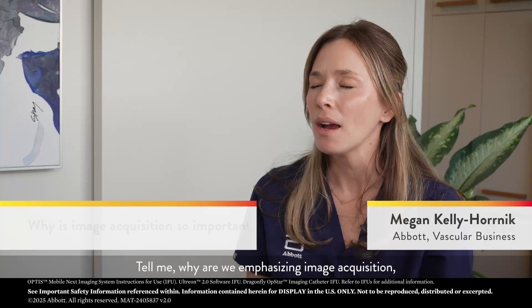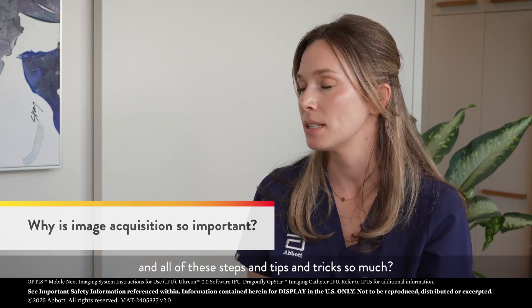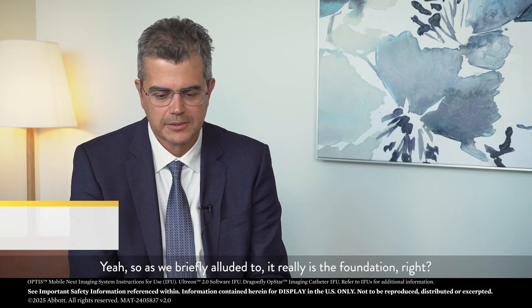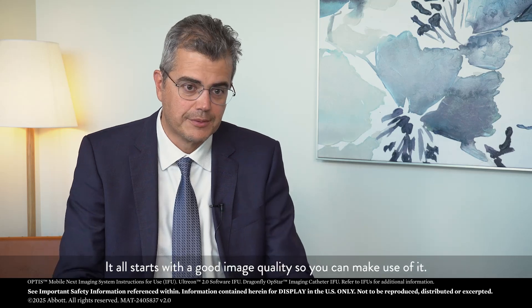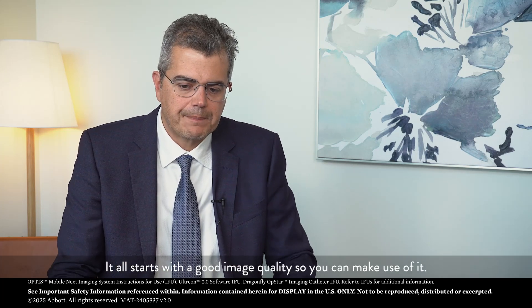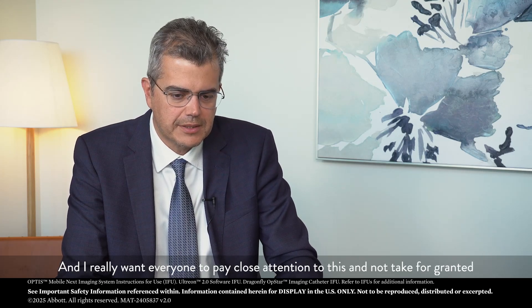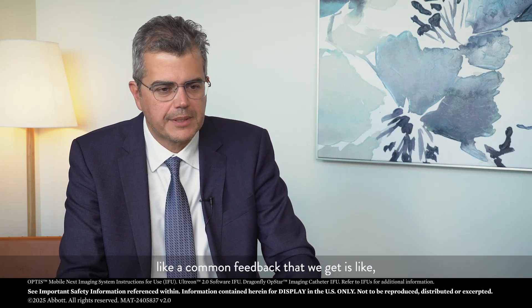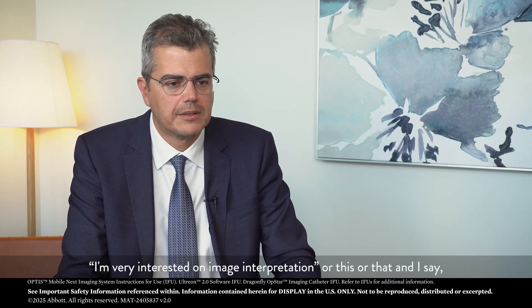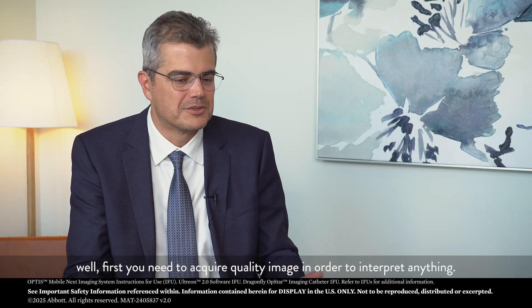Why are we emphasizing image acquisition and all of these steps, tips, and tricks so much? As we briefly alluded to, it really is the foundation. It all starts with good image quality so you can make use of it. A common feedback we get is that people are very interested in image interpretation. Well, first you need to acquire a quality image in order to interpret anything.